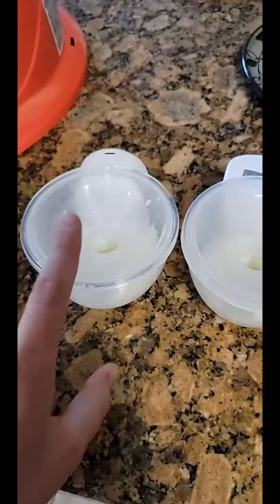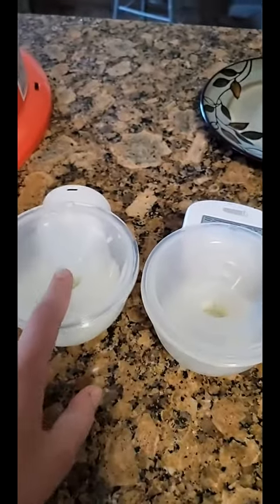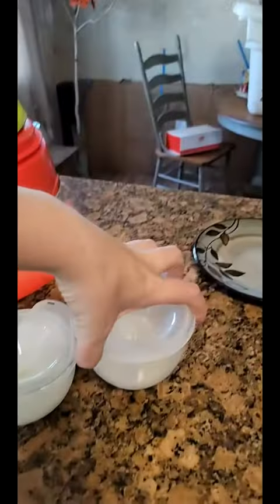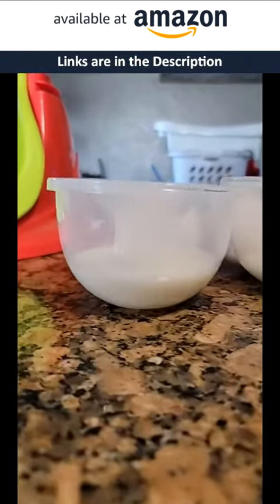Ragnar — or Hudson — also ate off of this side, which was my left boob, and he ate off this one most recently. Check this out — look how much I got out of that one versus how much I got out of this one. Like half the amount. Crazy — look at that. Okay, worth the money, definitely worth it.